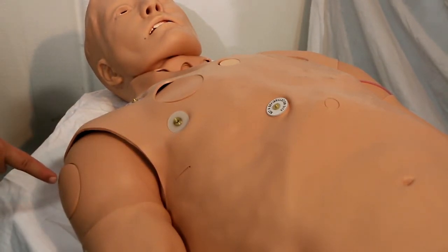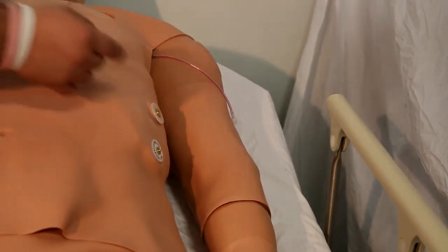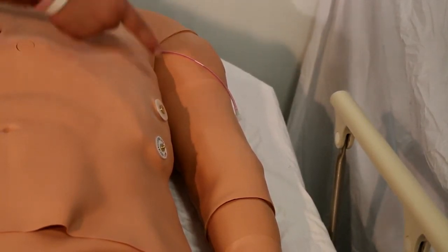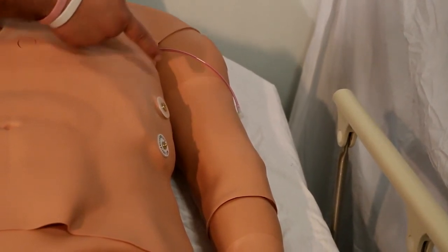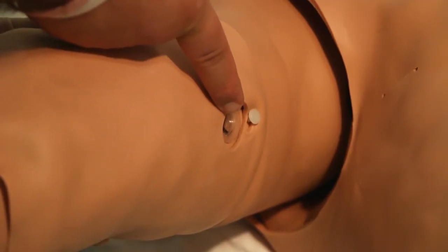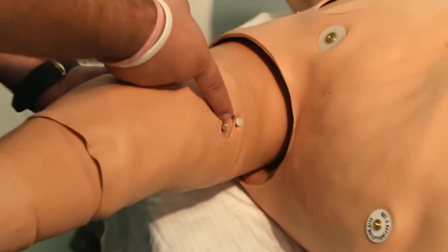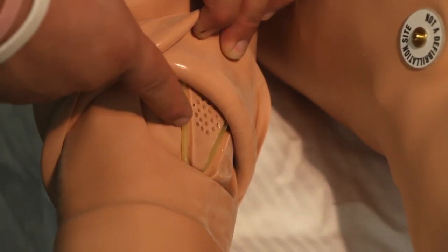One of the bilateral chest drains with fluids, upper arm IM site. The chest also has ECG sites and defib sites near the upper left arm. There is a bleed tube port for an optional trauma arm. On the arms there are bilateral blood pressure ports — inside the right arm, outside the left arm.